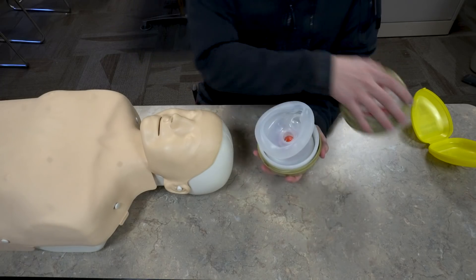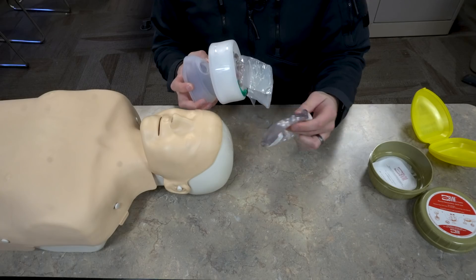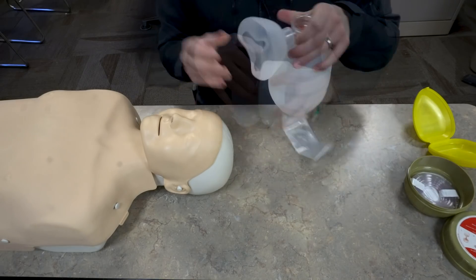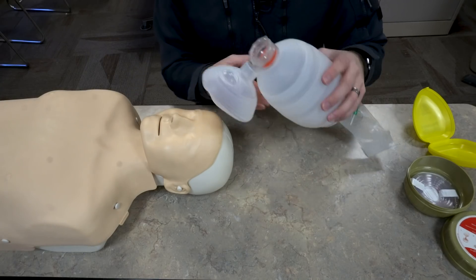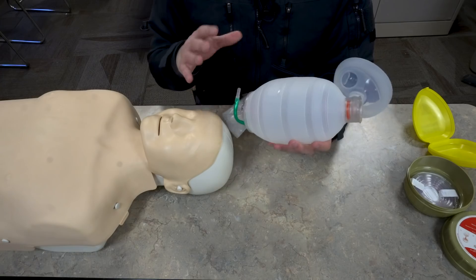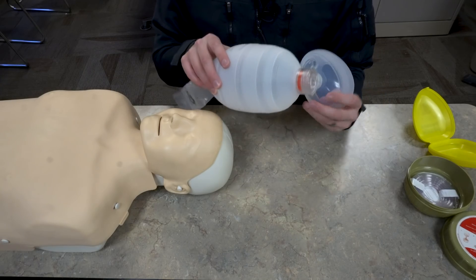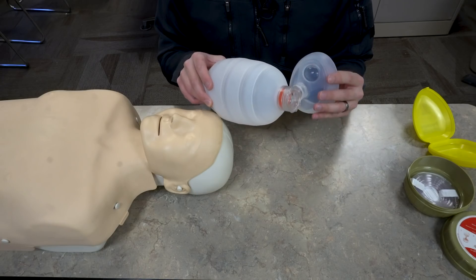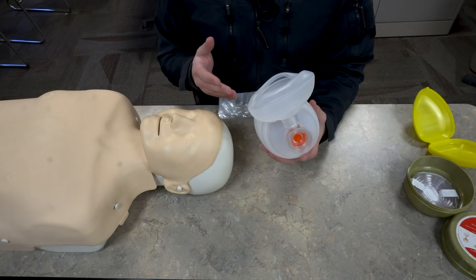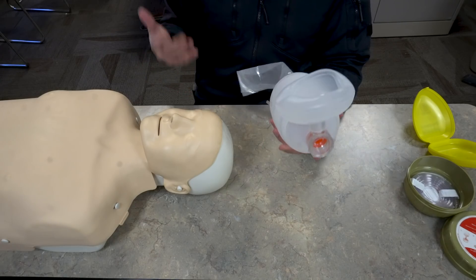To open this we just pull the cap off and the BVM comes out. You can see this one comes with some O2 tubing — if we do have a tank we can connect that to it. If you're just a lay person and you're not going to have an O2 tank, you can actually get this without that option, it's just a little bit cheaper. Once it's expanded you can see it's roughly the same as the other bag. Now, the American Heart Association says you should not be doing this if you're on your own and you're not a professional rescuer, and even if you are a professional they recommend always having two people because it is more taxing and requires a lot of practice. I do this enough where I can get a very good seal and ventilate very effectively, so that's generally what I choose to carry and use, and I'm usually around other healthcare professionals that can assist me if need be.